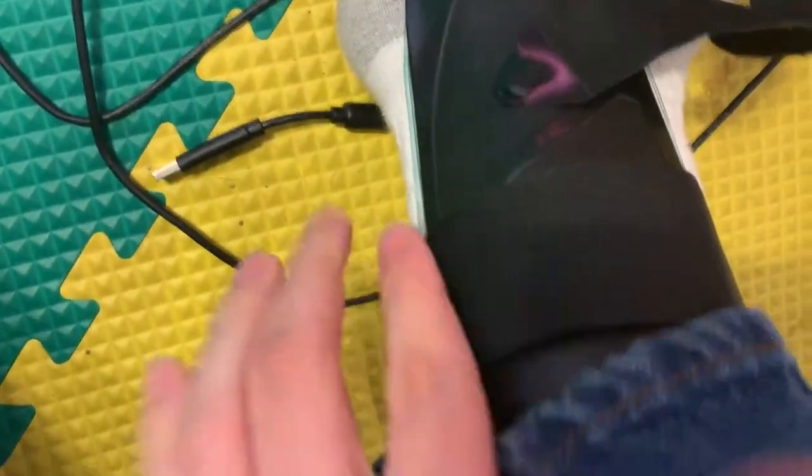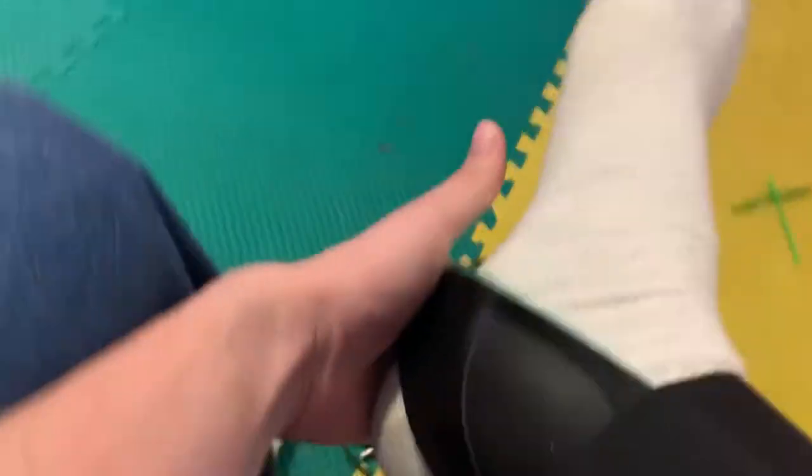Sorry about that. So you've got it on like this — alright, it goes around here. This is where it starts and it locks in. You want it to come behind and go around, right on the ankle. You have it come around and it's on. You want it right there so it provides support. You want it flat down on the floor when you put it on.